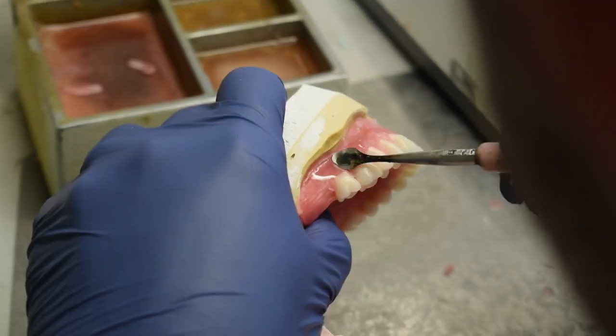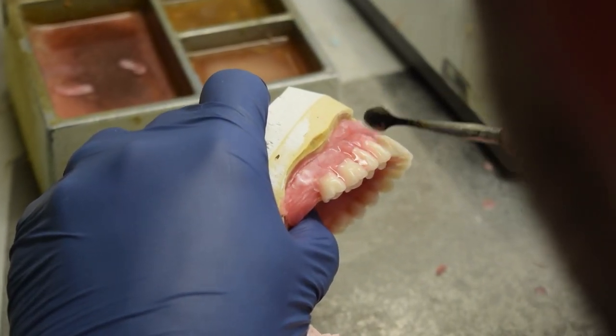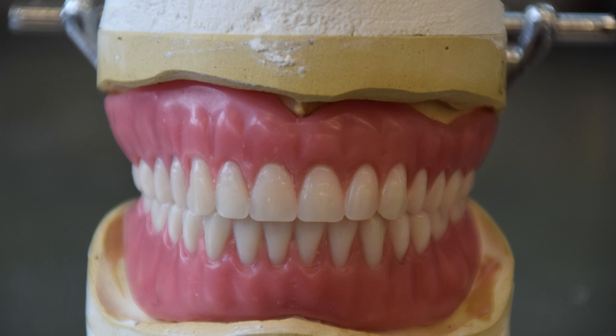The completed wax try-in is then sent to the dentist so final adjustments can be made and fit and phonetics can be confirmed.